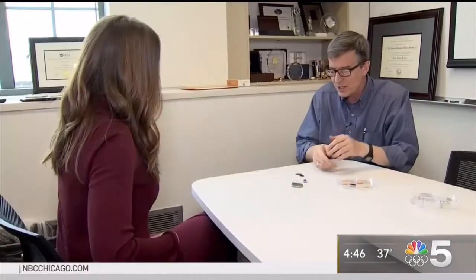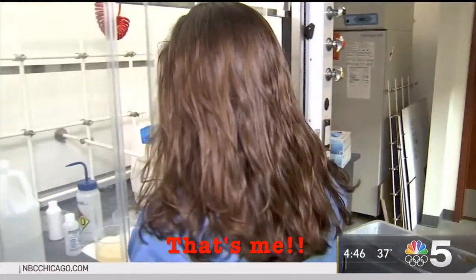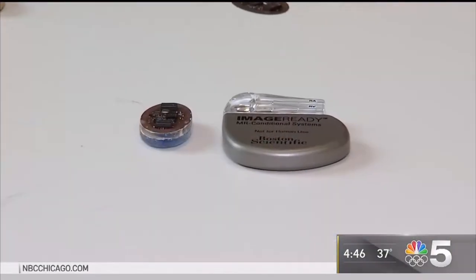The first responders administering naloxone, a life-saving drug to someone who has overdosed, but what if the addict's alone at the time of an overdose? One Northwestern University professor has developed an implantable device that would administer the drug when it senses that a person is overdosing. That's why Professor John Rogers and his team on the Northwestern campus are developing this implant that is smaller than a pacemaker.